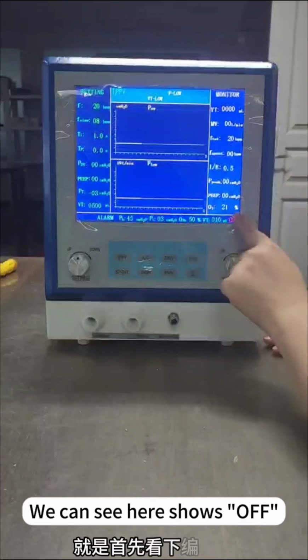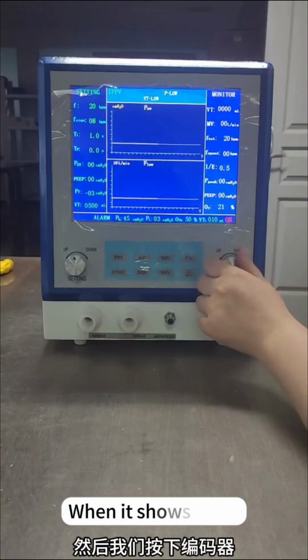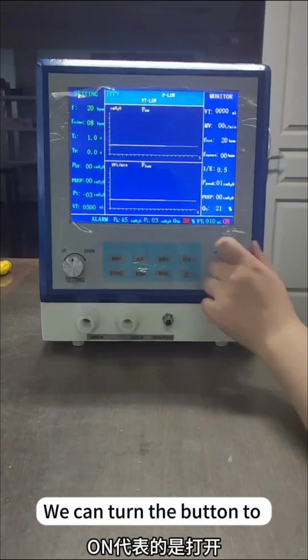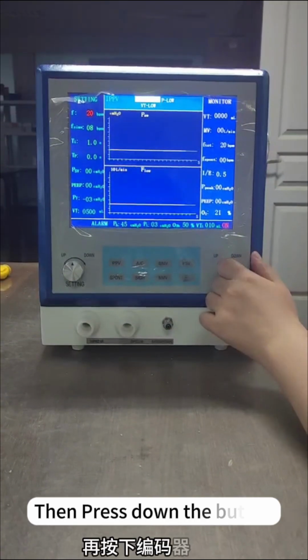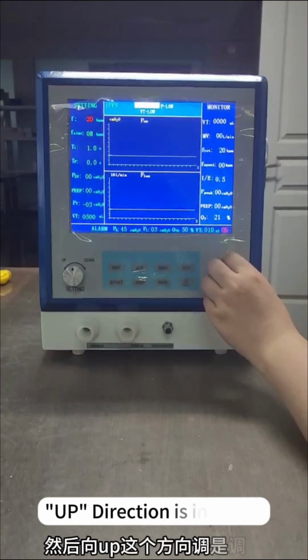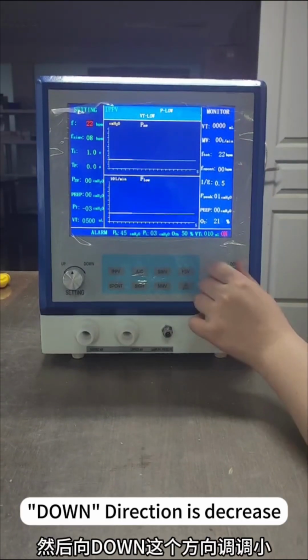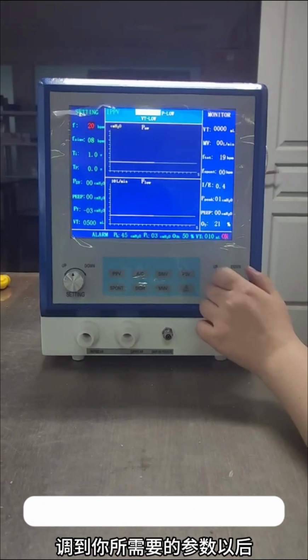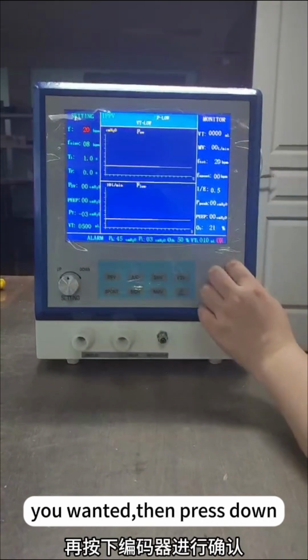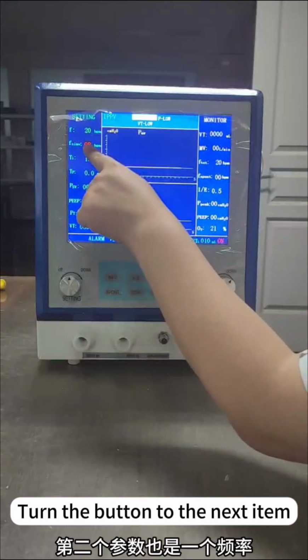We can see here it shows off. We need to press down the button. When it shows on, we can turn the button to the parameter you need to adjust. Then press down the button. Up direction is increase. Down direction is decrease. Turn the button to the value you want, then press down. Then you can turn the button to the next item.